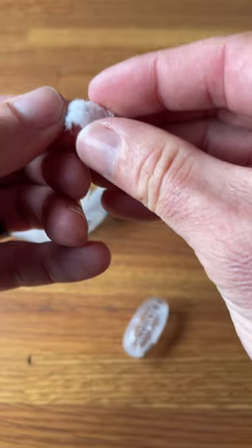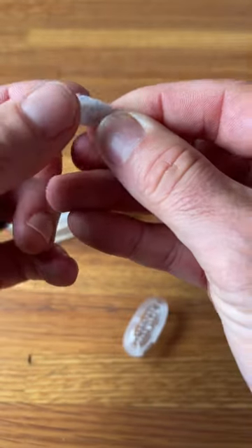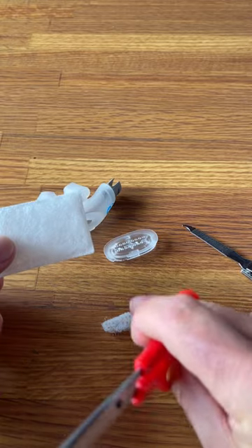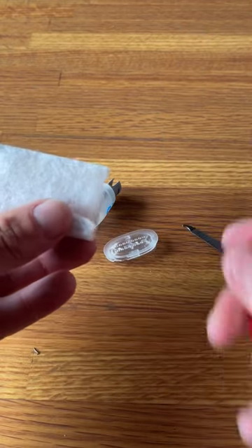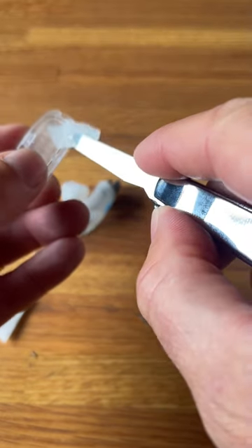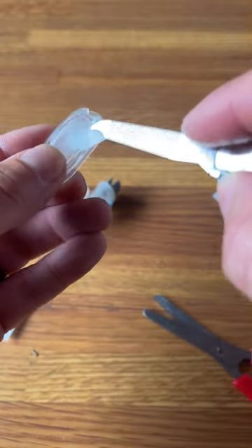You can see what happens — this one's not too bad, but they start to get all moldy. You can see the little black dots. Now just grab a standard CPAP filter, match it sort of up to size, and just thread it back in.